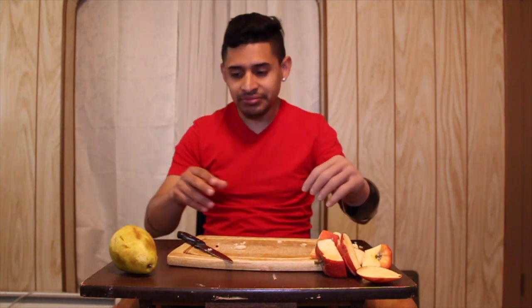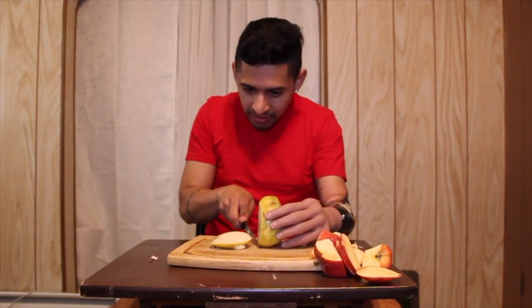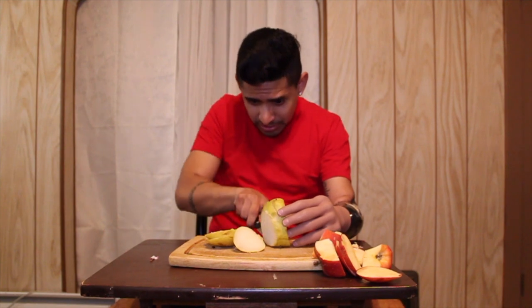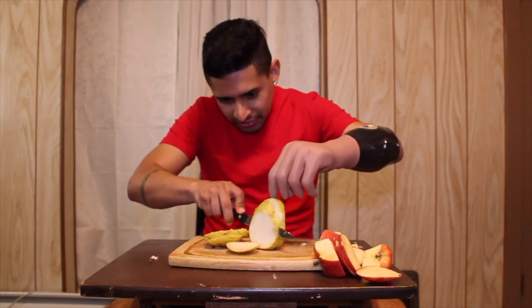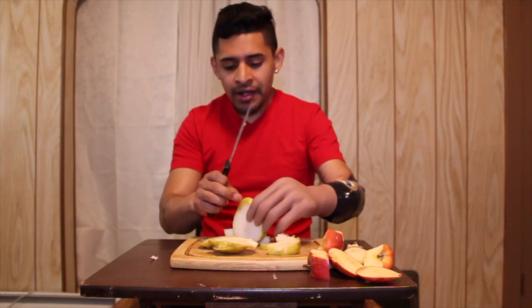I have to decide which side to grab it from because it's kind of hard. I want to press it, but not too hard. Let's turn this to the other side — one, two — oh, it's kind of hard. There, I'm going to do this.